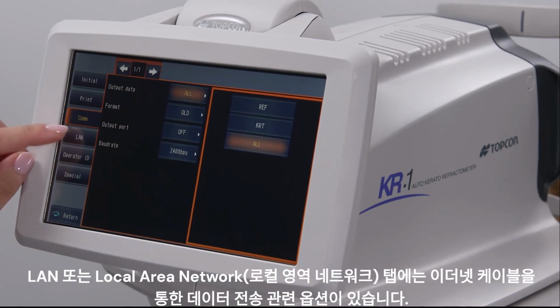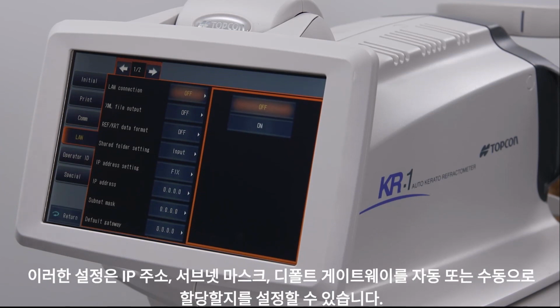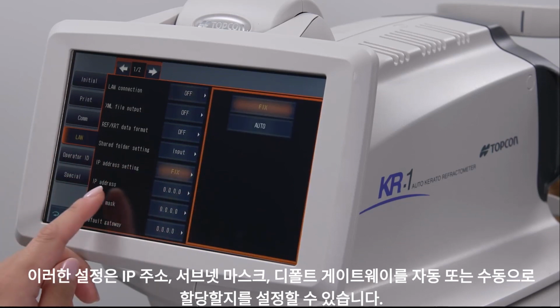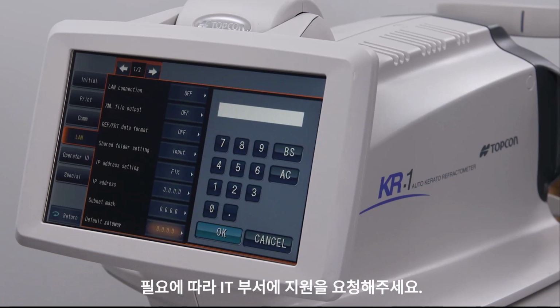The LAN, or Local Area Network tab, has options involving exporting data through an Ethernet cable. These settings include whether the IP address will be automatically or manually assigned, and options to manually set the IP address, the subnet mask, and default gateway. Please have your IT department contact Topcon tech support as needed.